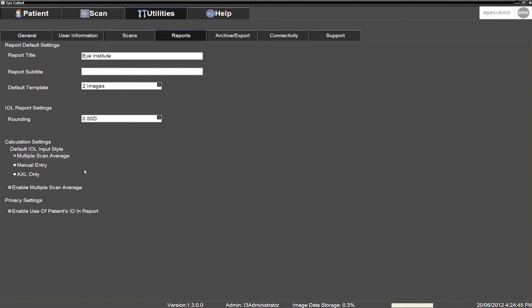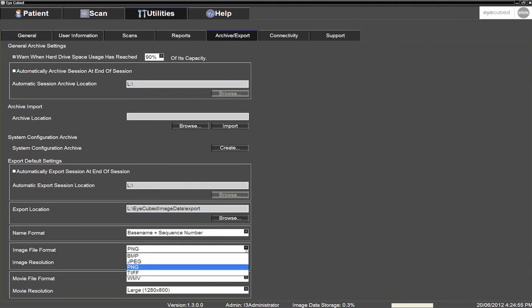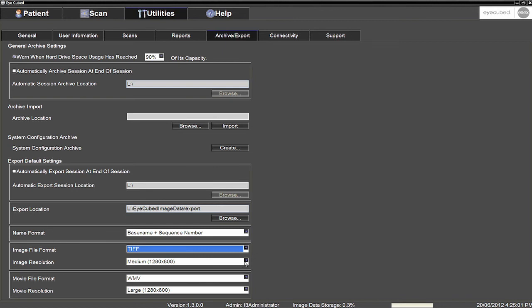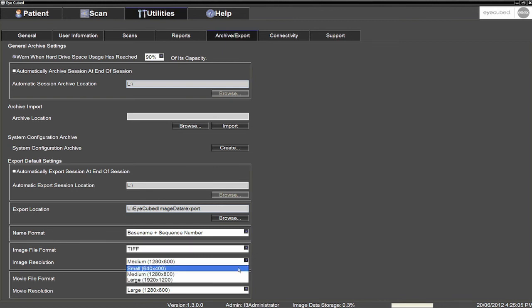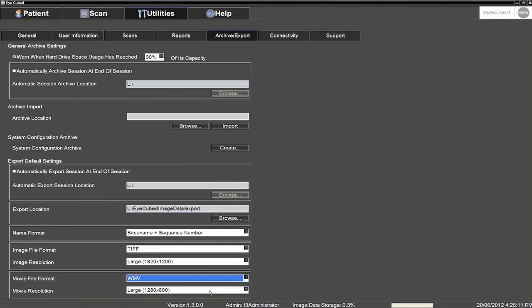Now go to the Archive Export sub-tab and select the default format and resolution for all exported files. Regarding images, the TIFF image file format retains the best image quality when exporting pictures. With regards to movie files, we recommend selecting the WMV movie file format, as it is highly compatible with PowerPoint.